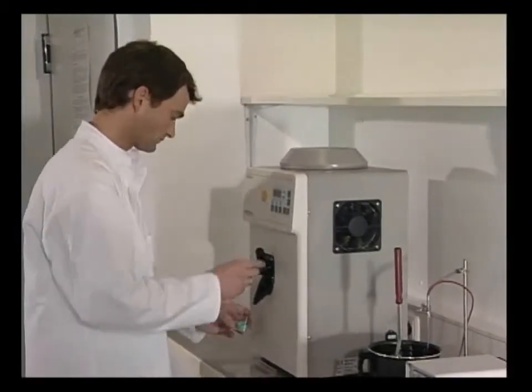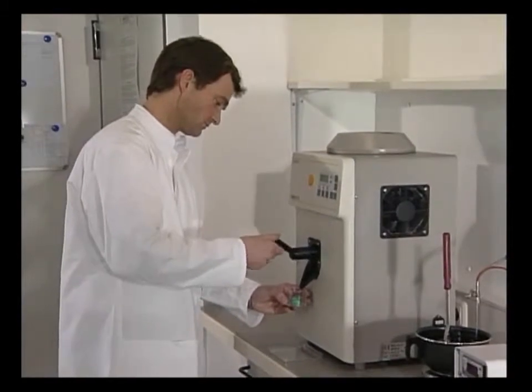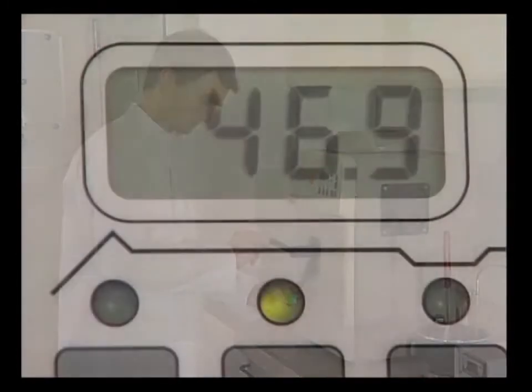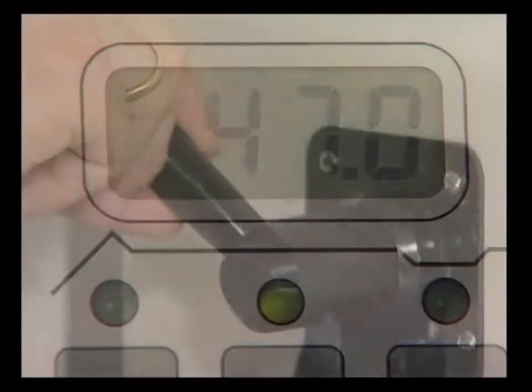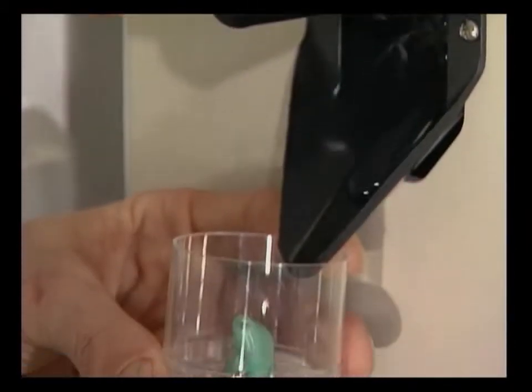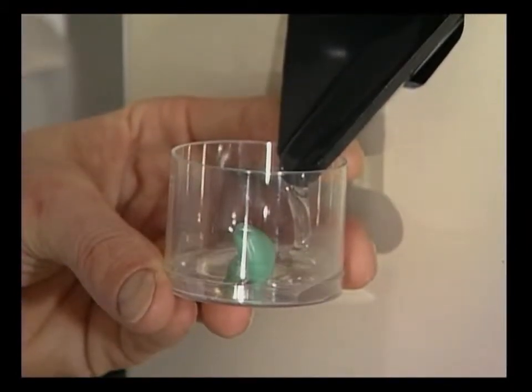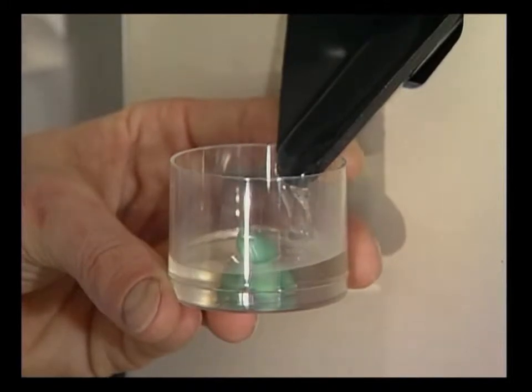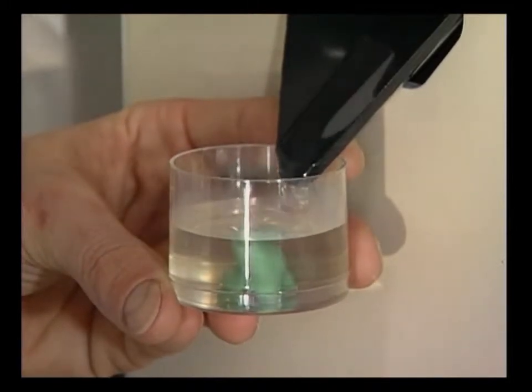The duplicating material is kept liquid inside the duplicating unit at a temperature of exactly 47 degrees Celsius. The investment form is held somewhat diagonally and then filled until about 1 cm of the auditory canal tip is covered.